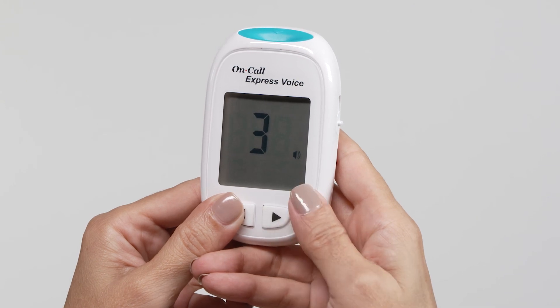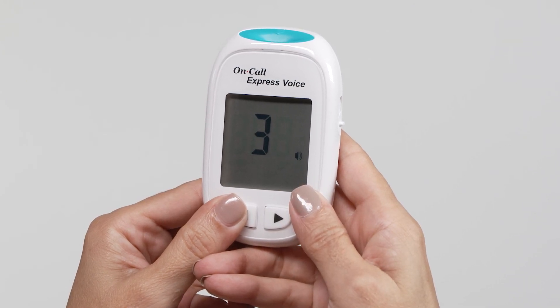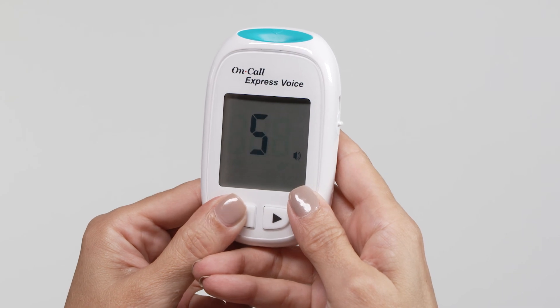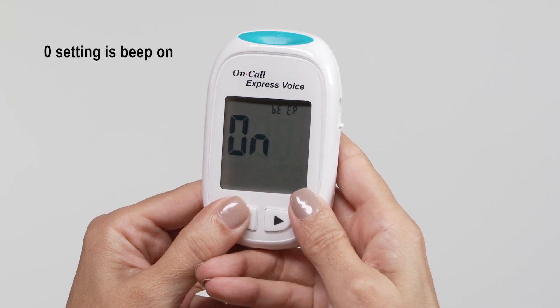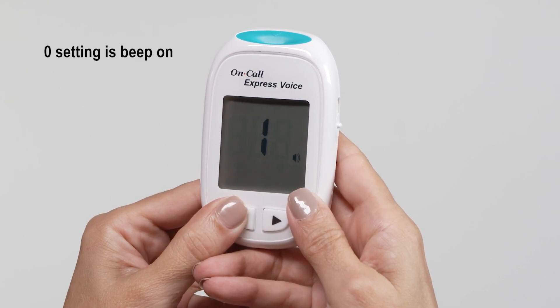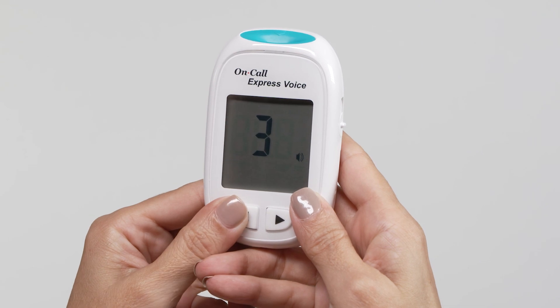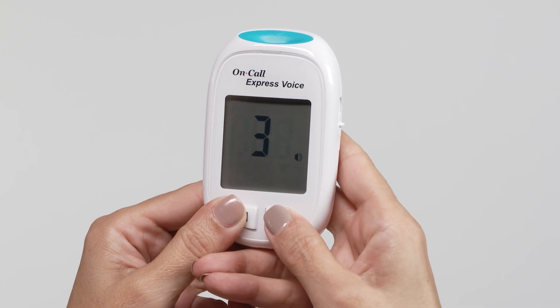There are six volume levels that the user can select from, zero to five. Wait for the meter to say volume to set it. Press the left button to select an appropriate volume. Press the right button to confirm your selection.